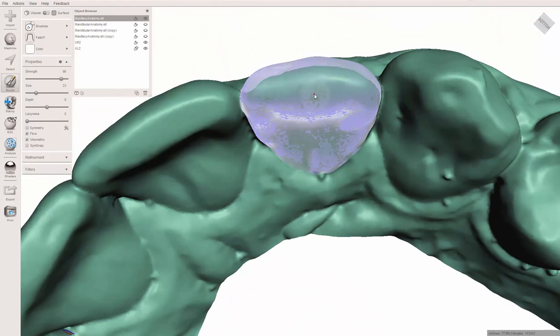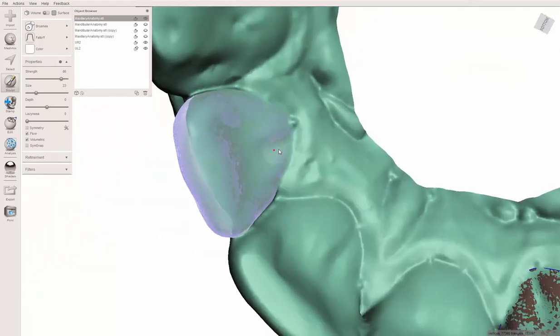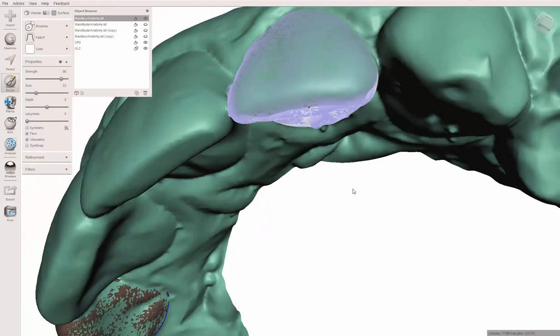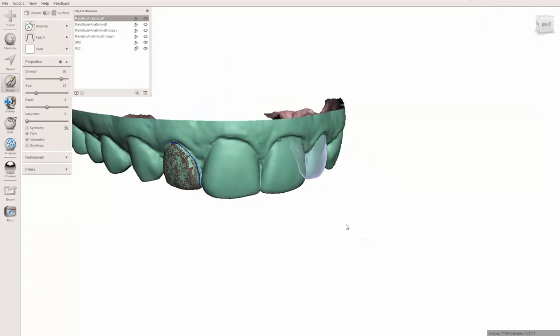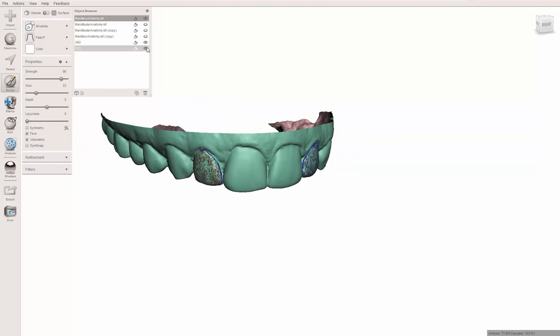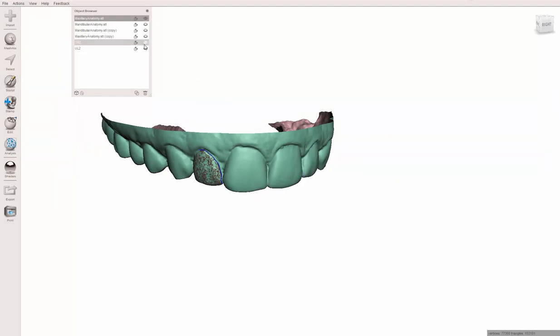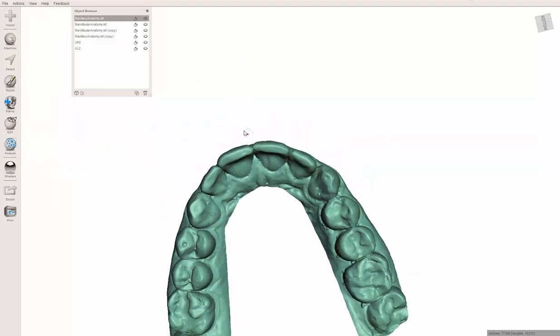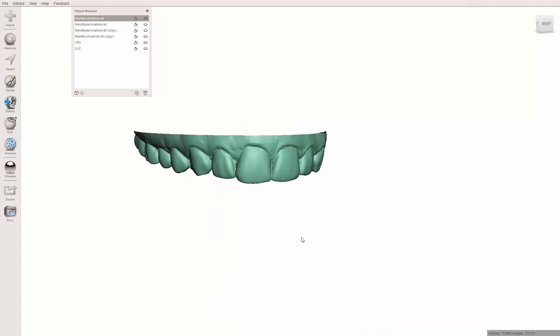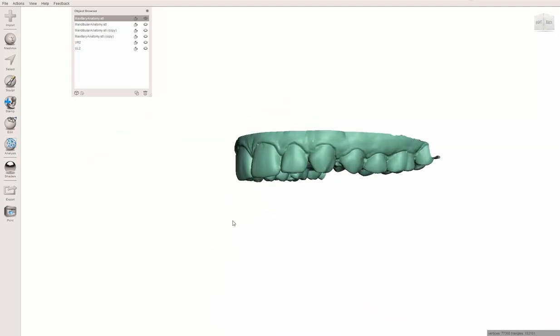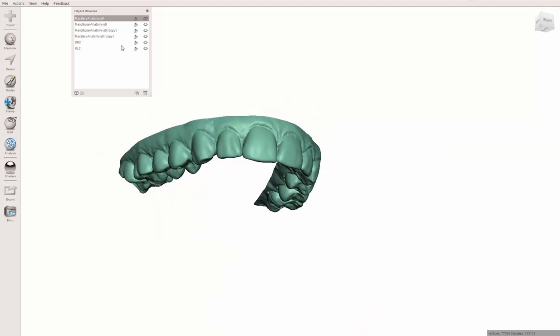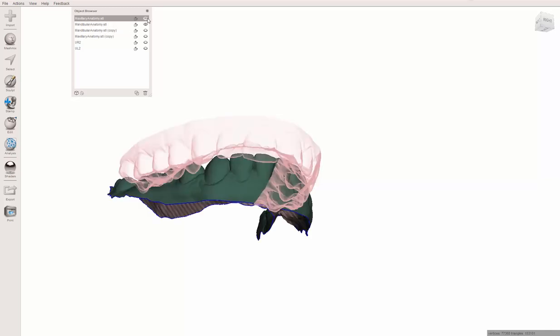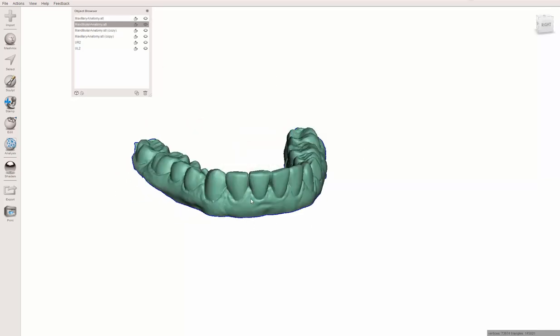The question in the end is, was it worth doing it here, should I have just done it in Blue Sky Plan? I don't know really. I love Blue Sky Plan, of course. I've helped with some of the developments, so I'm pretty proud of that. But this is a quick, easy little thing. We're not doing much here, we're just basically making a retainer with slight movement of teeth, and I'd say it worked pretty well.